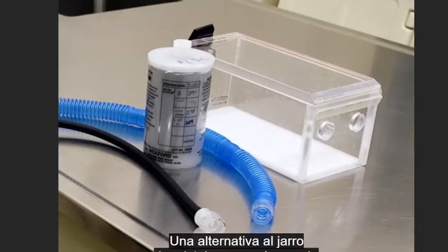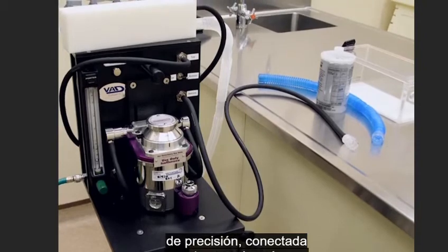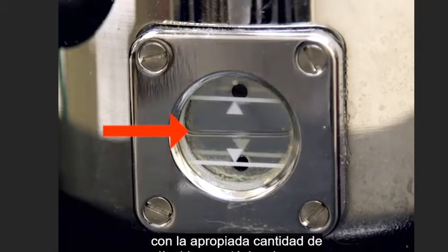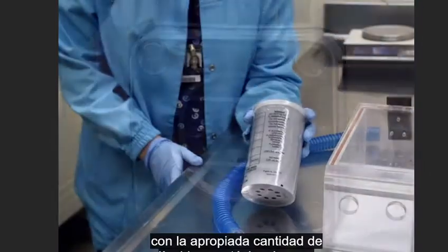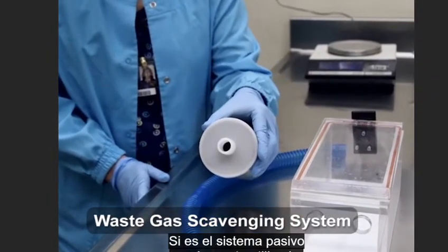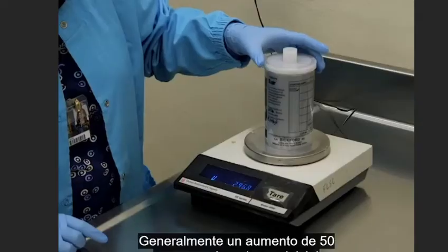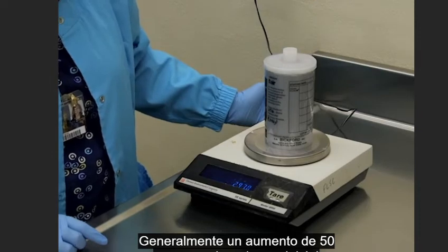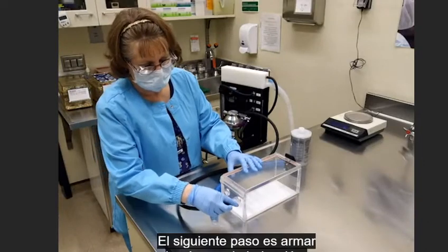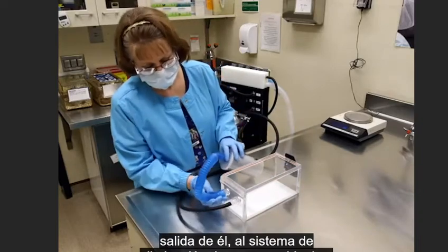An alternative to the bell jar is an induction chamber used in conjunction with a precision vaporizer machine connected to an oxygen tank. The first step is to ensure that the vaporizer is filled with the appropriate amount of liquid anesthetic. Next, check the waste gas scavenging system. If it is the commonly used passive system, weigh the canister to determine if it is still effective — generally an increase of 50 grams above the starting weight is the point at which the canister is spent. The next step is to assemble the induction chamber, ensuring that the input is from the vaporizer and output is to the waste gas scavenging system.